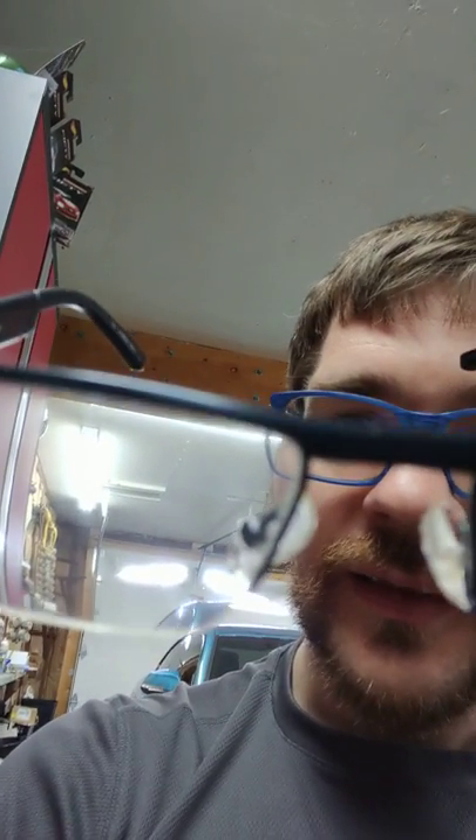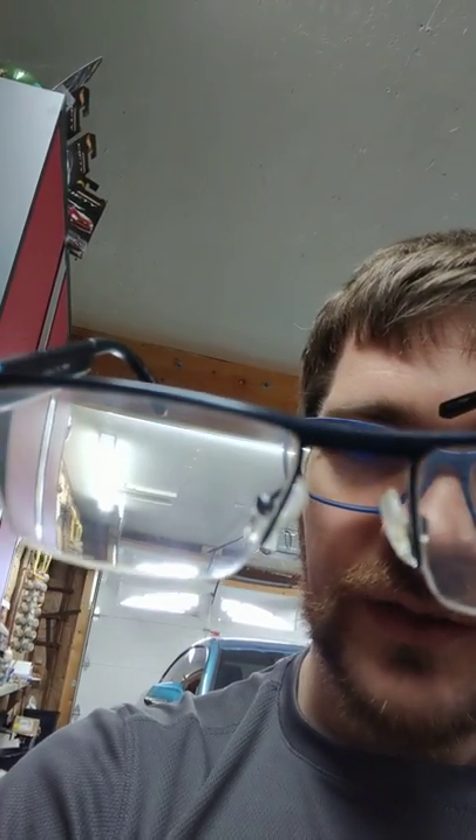You can see this one — it looks kind of hazy. This is a very old pair of mine. I keep it around for when I'm doing things where I don't want to mess up my good glasses. If we get in close over that light source, you can see that haze — it looks like just a million little scratches throughout the lens surface. And that is actually something we call crazing or micro-cracking, which is a failure within the anti-reflective coating itself.